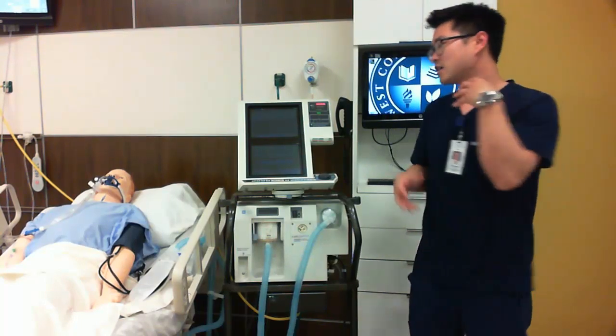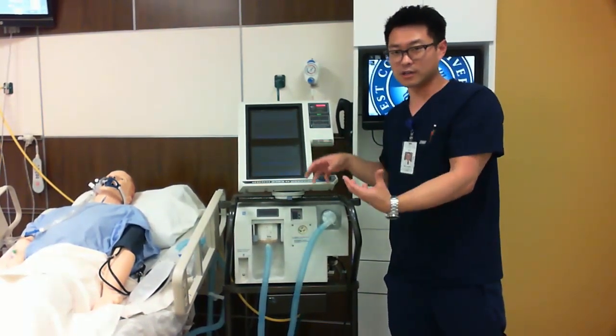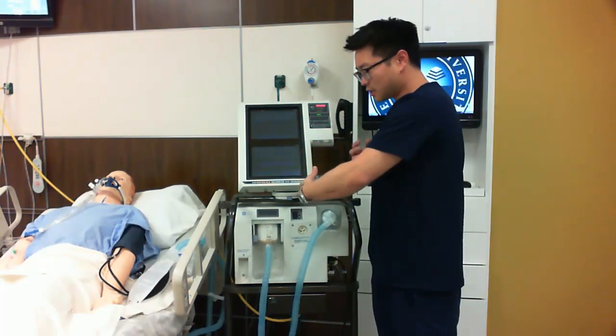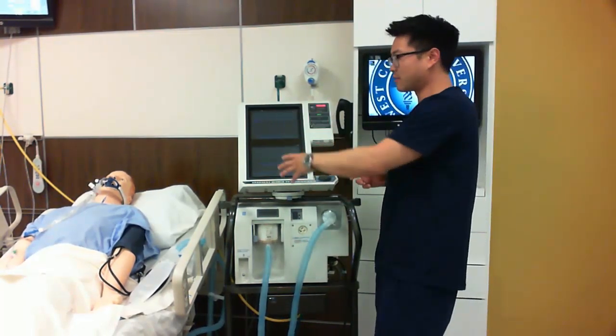But first off, before we go any further, just a disclaimer: as students in the clinical settings, your hospitals may not want you to touch the ventilator. If that's the case, then of course follow those policies and procedures and let your nurse know if the alarms are going off on your ventilator. However, again, the oxygenation and mute buttons are two that we're going to go over. Those are some important things that we have on our ventilator.